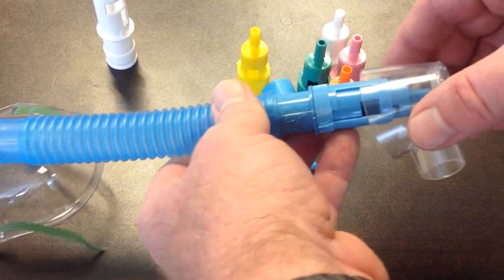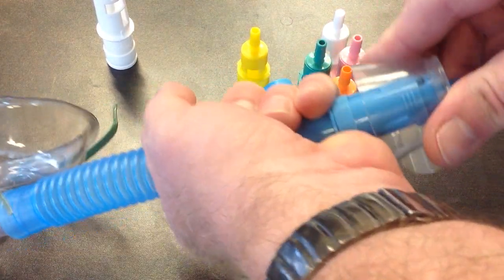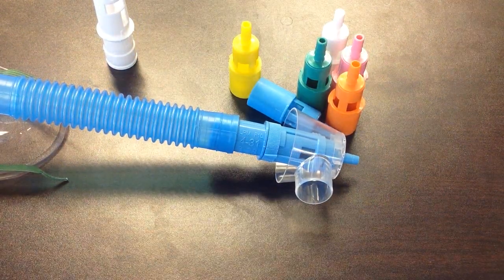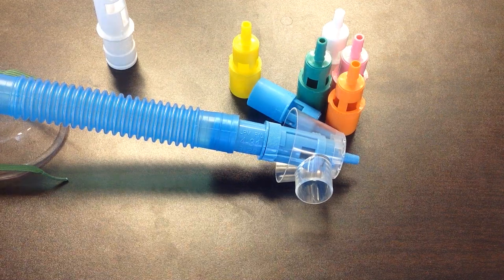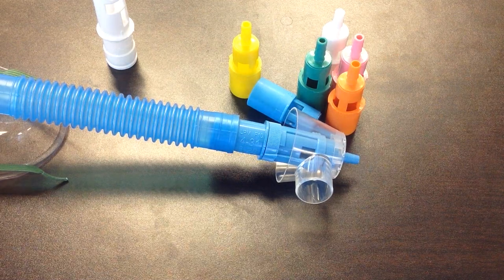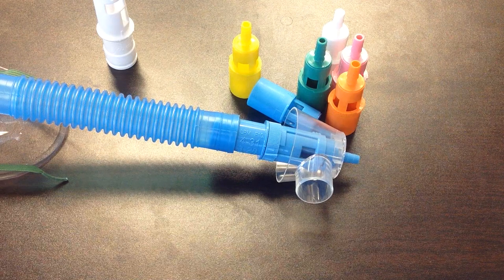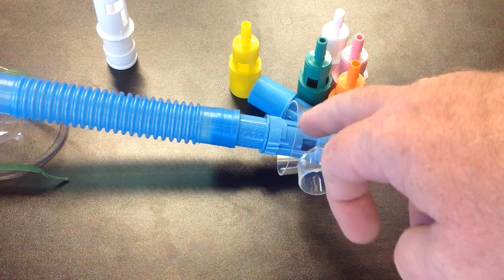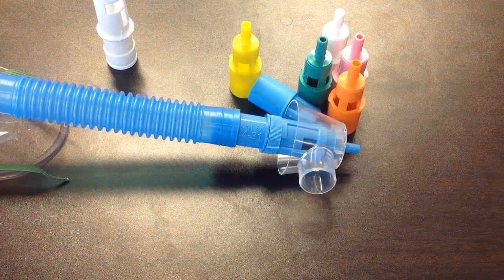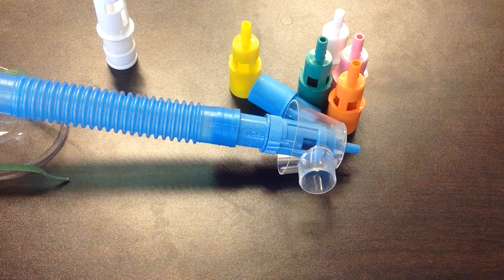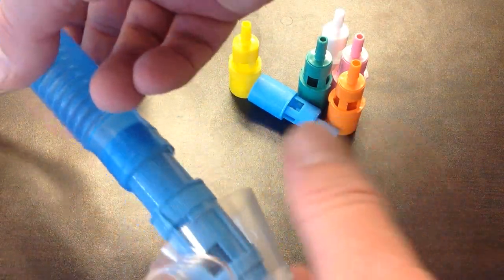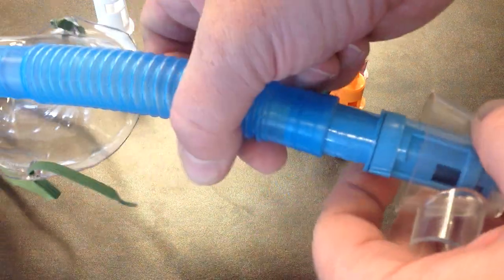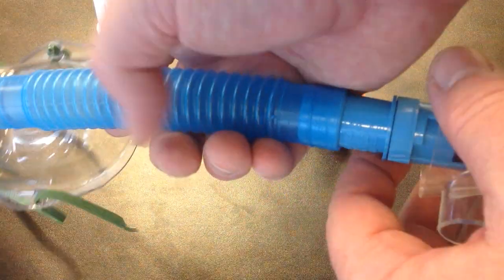For lab check-offs, you then put the aerosol collar on. In the hospital you will not see this that much. The true usage of that aerosol collar is in case you want to deliver humidified air. You can hook the corrugated tubing. We'll go over that on humidification chapter. But then blow in humidified oxygen or humidified air into here to give the patient some extra humidity. I utilize this so the patient's arms and bed sheets do not cover your entrainment ports, thusly giving the patient a higher oxygen delivery than needed.